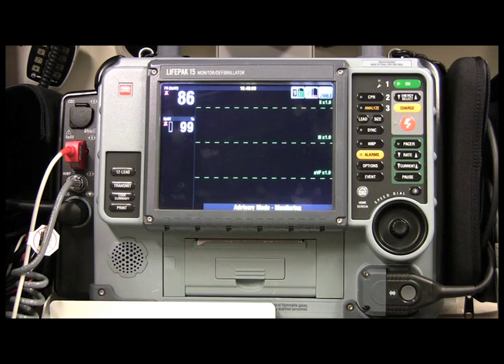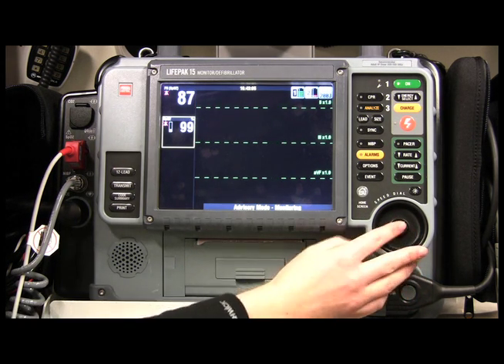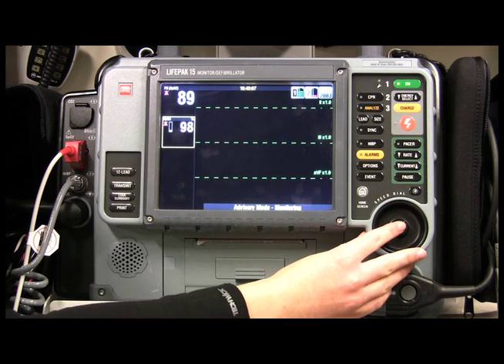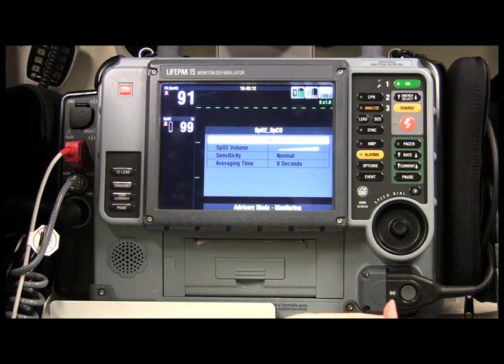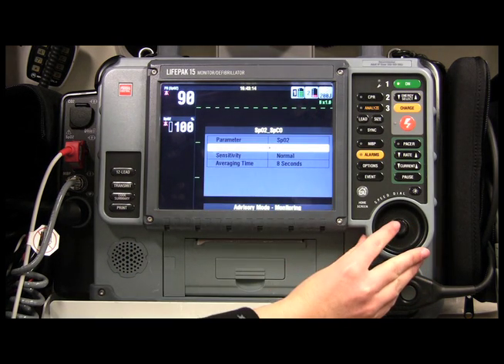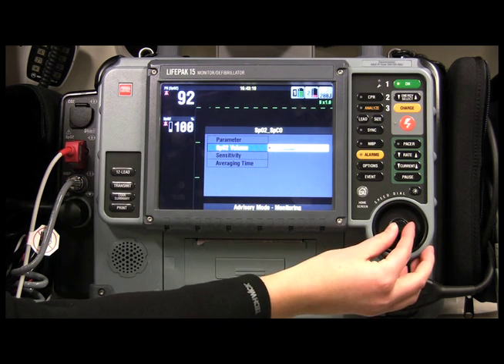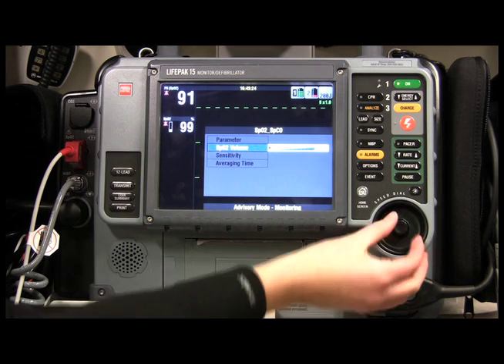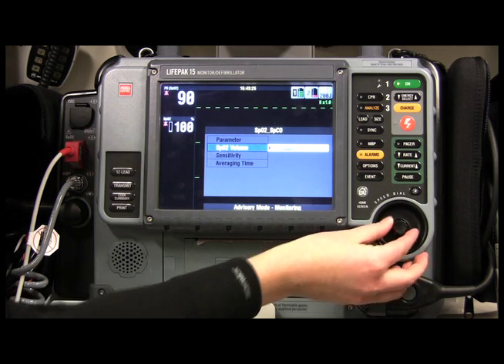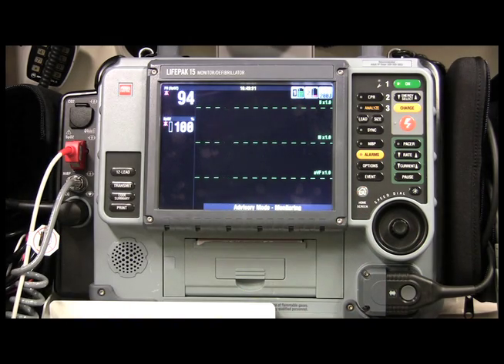Let's say I have an unstable patient and I'd really like to hear my pulse rate. All I have to do is come over, highlight the box, click on SpO2 Volume, and I can choose the volume at which I want to hear my pulse rate. I'll select Quiet, click, and hit Home Screen.